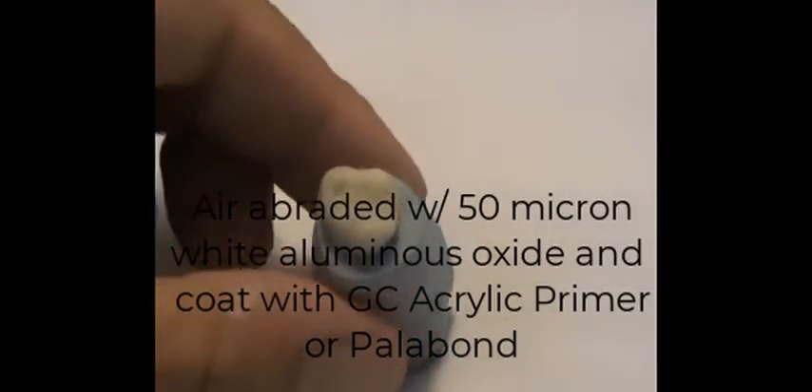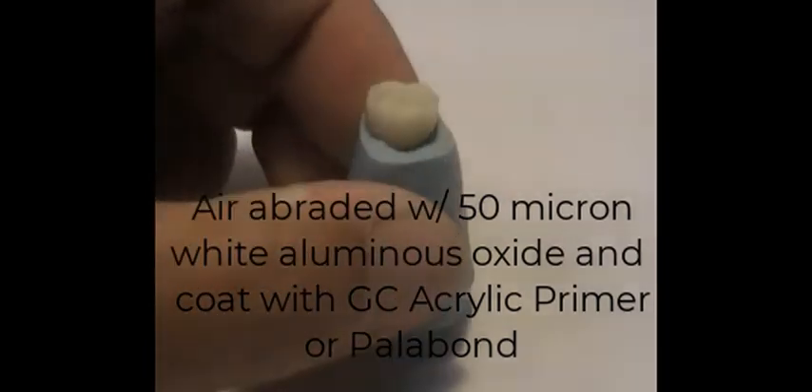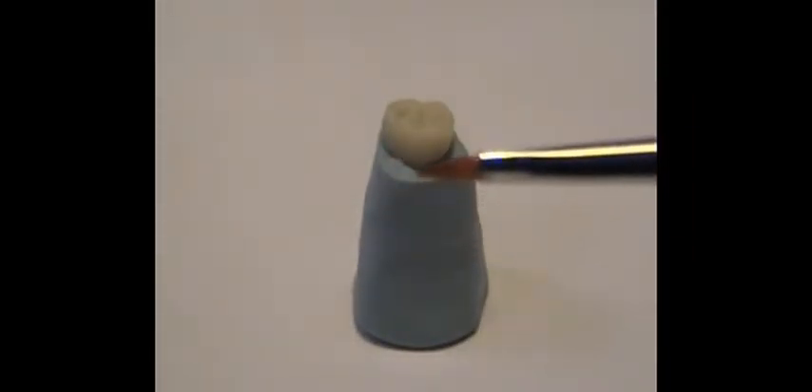The surface is dried — you can tell because it's not damp. Now I move on to the next step: I have to bond OptiGlaze to it right away. The best way to do that is to take a new brush, one that's totally dedicated to OptiGlaze.